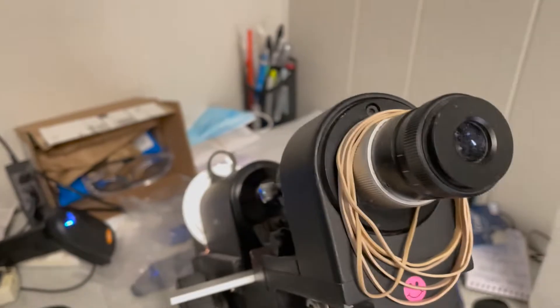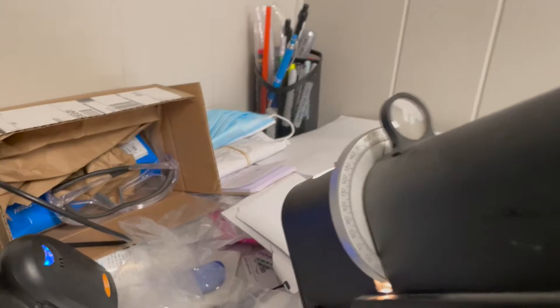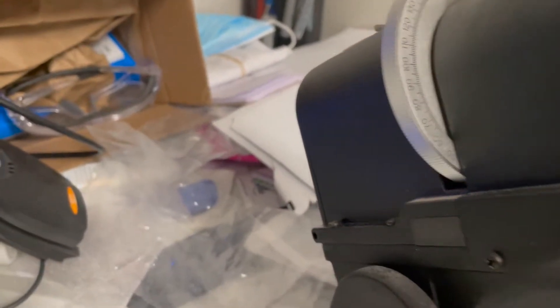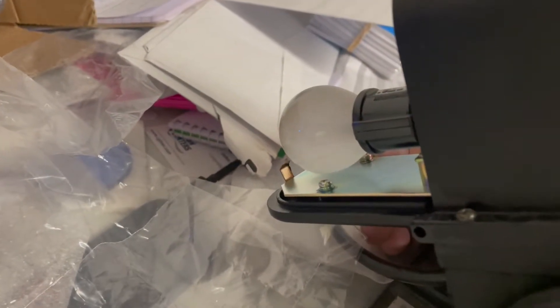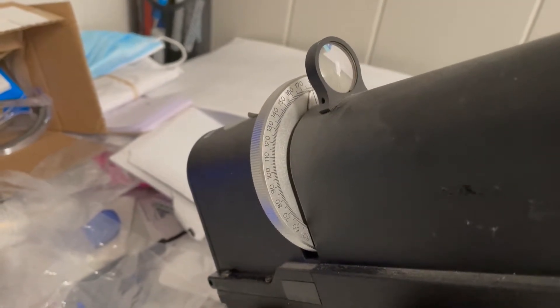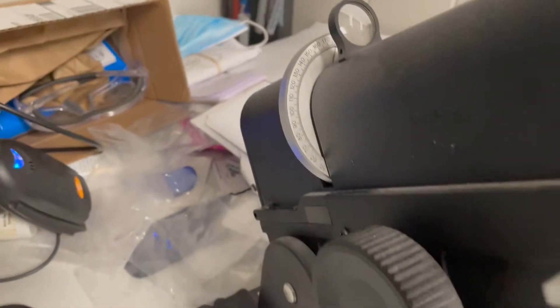All right so starting off here, we'll start right on the end. If you open this up this is where the light bulb is stored. I usually get replacements from Hilco but you can get them from wherever.